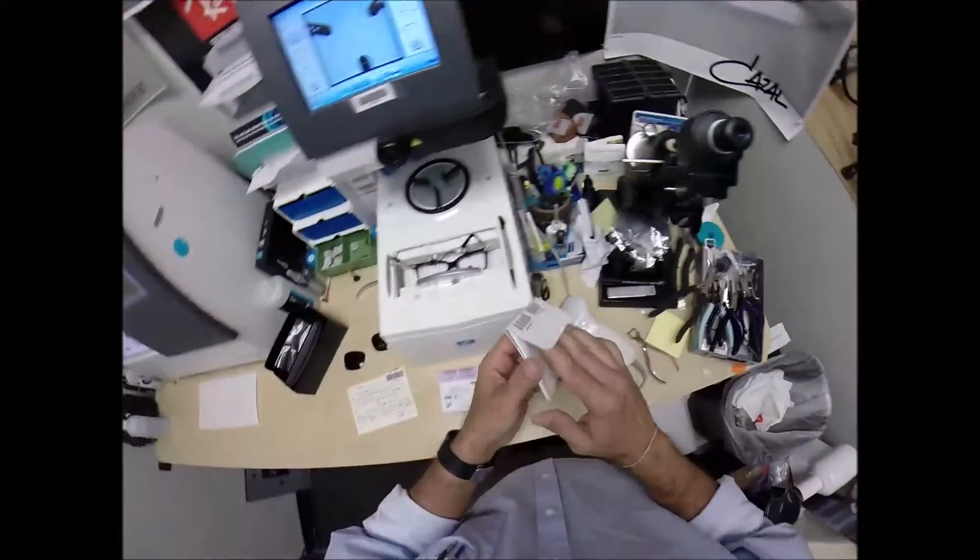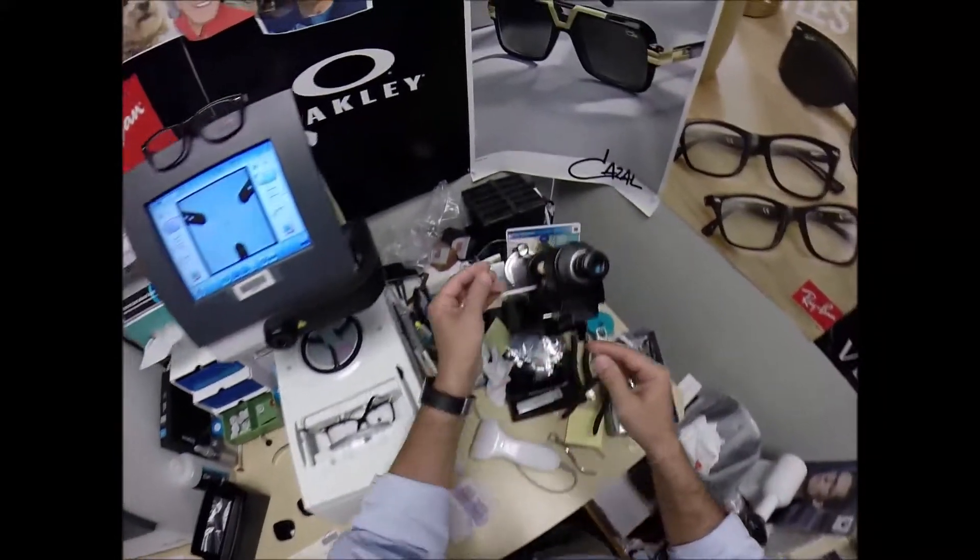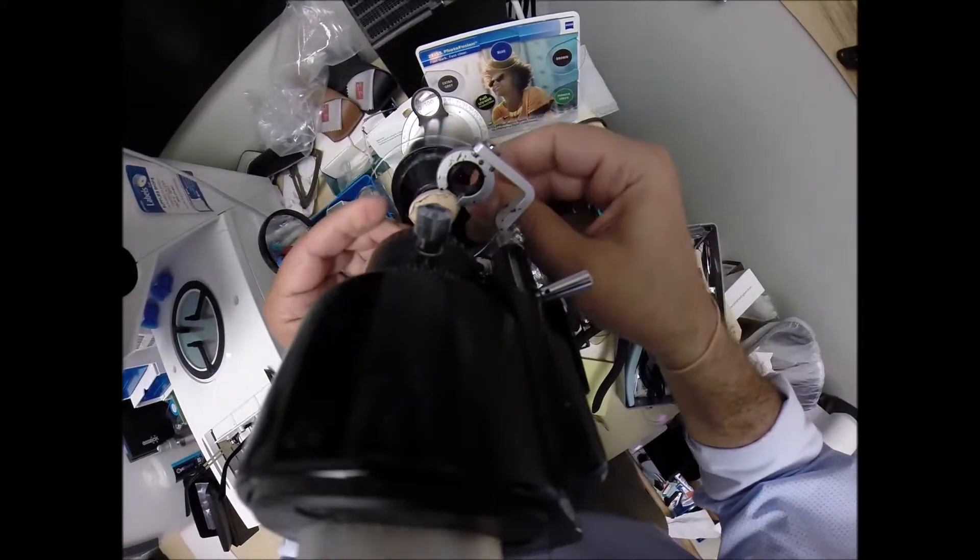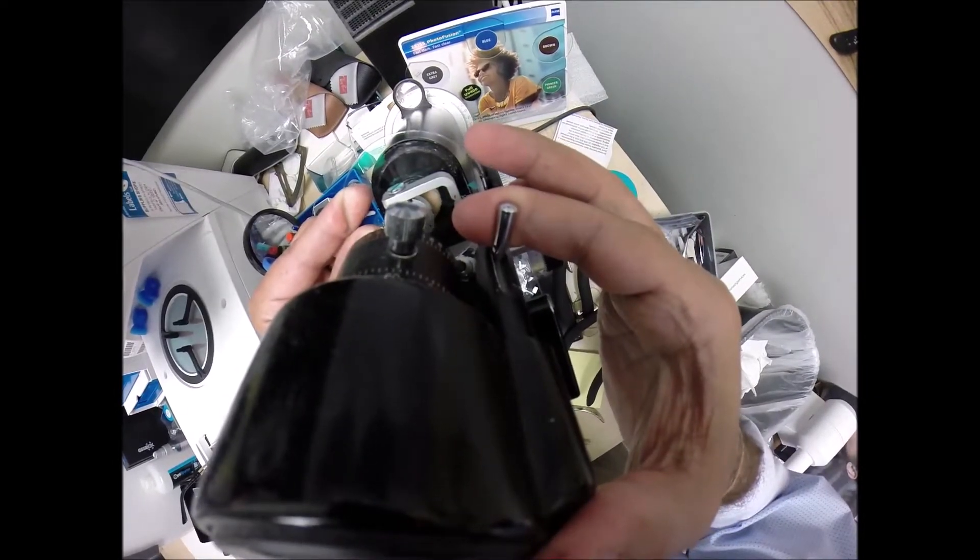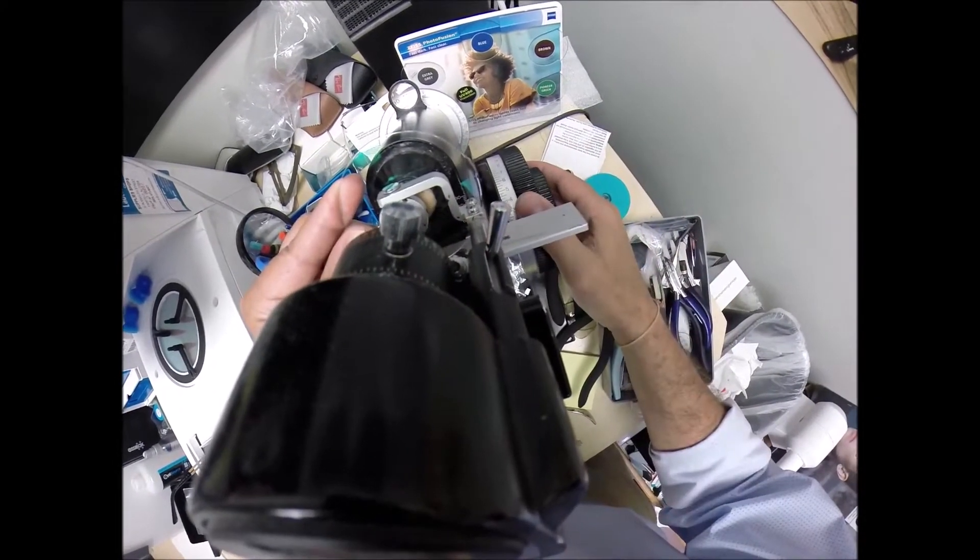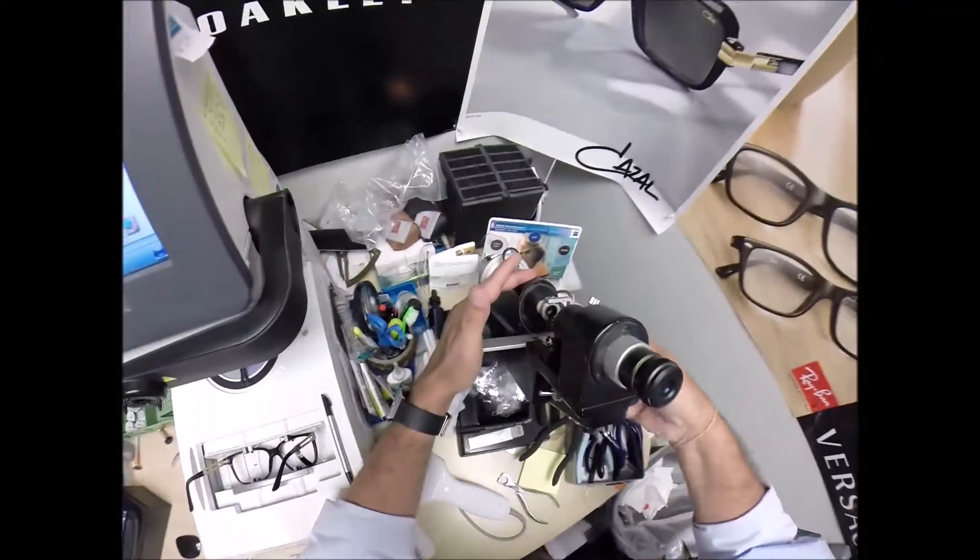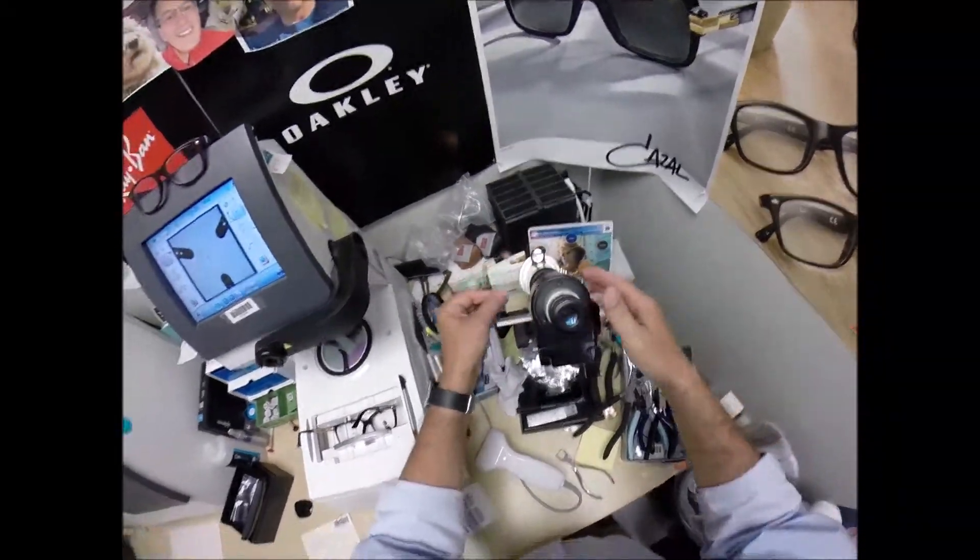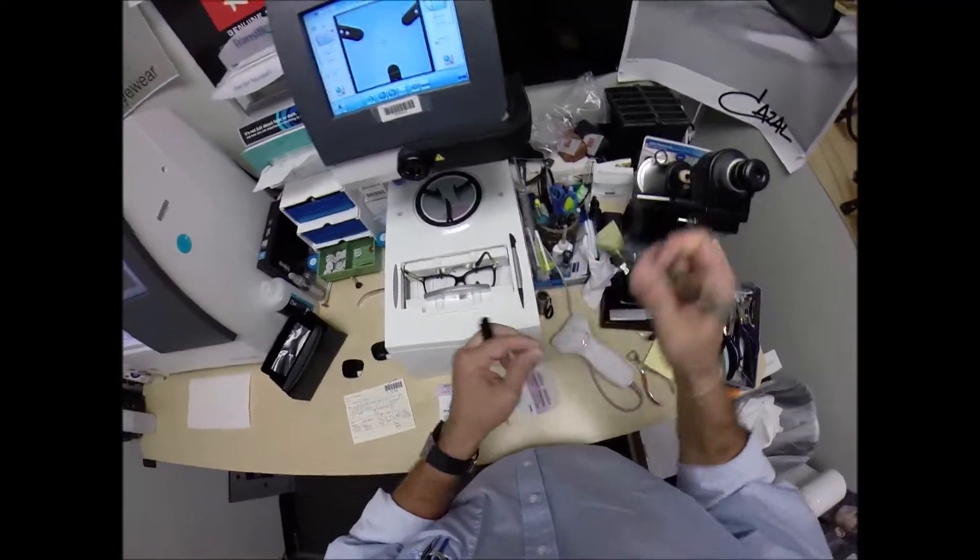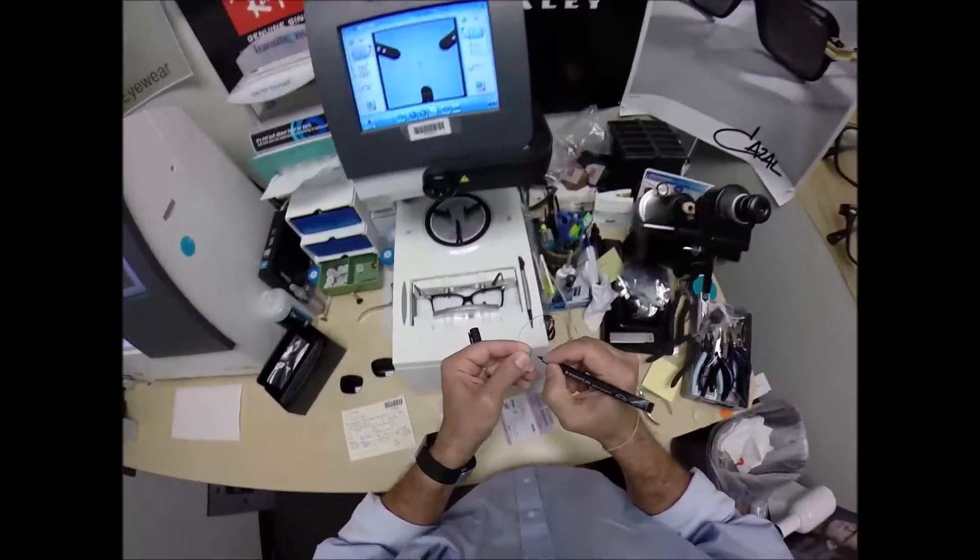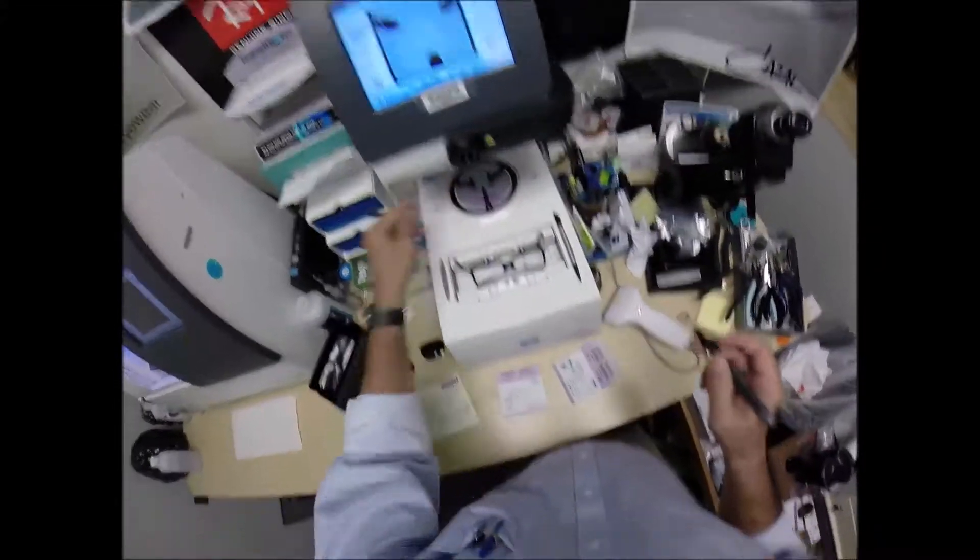Put the power drum on plus a quarter. Take the lens out of the protective sleeve. Rotate it until the spherical component comes into view first. Check the astigmatism correction. That lines up good. Let's go ahead and put three dots on those lenses. And we're going to label this one the right lens.